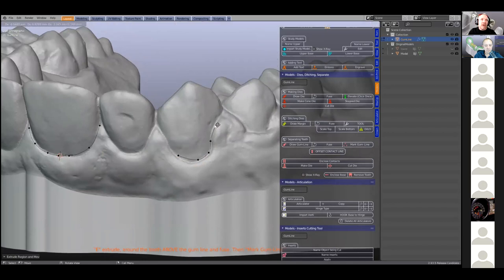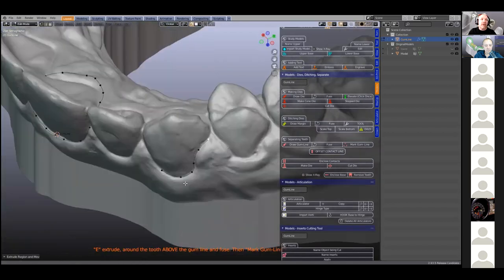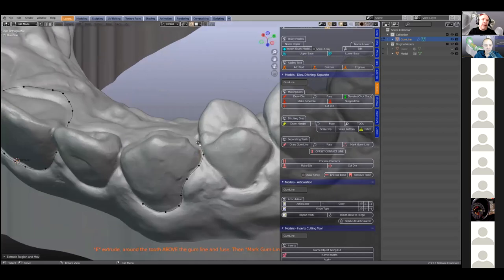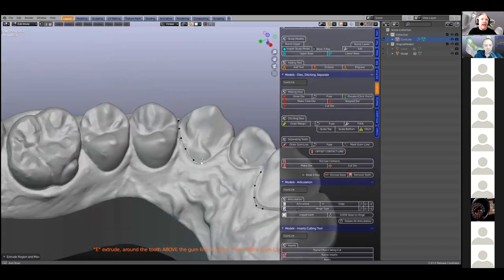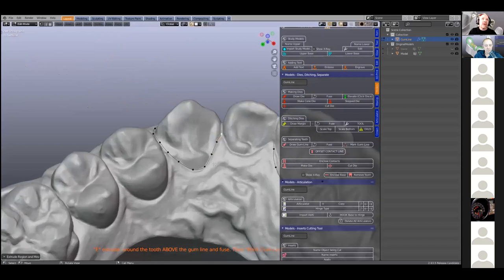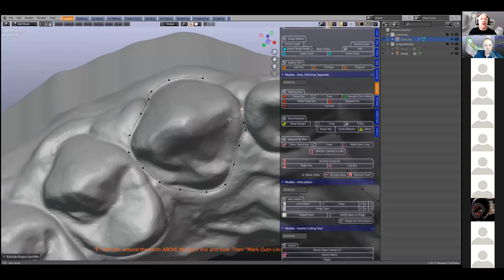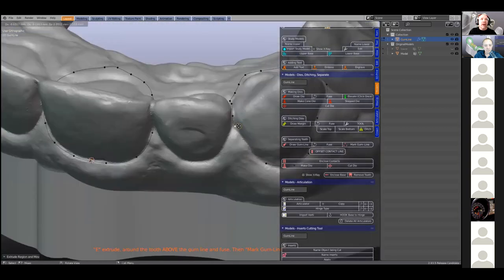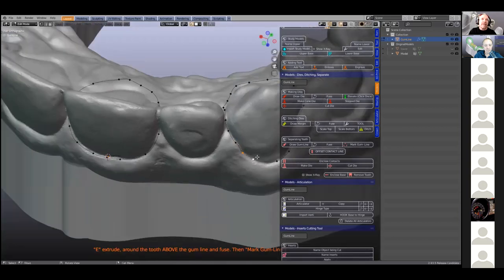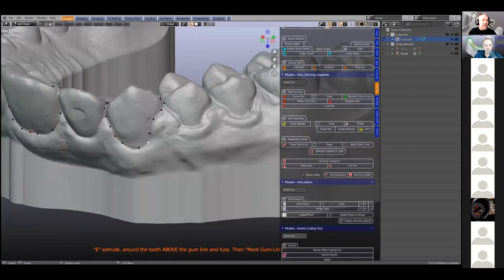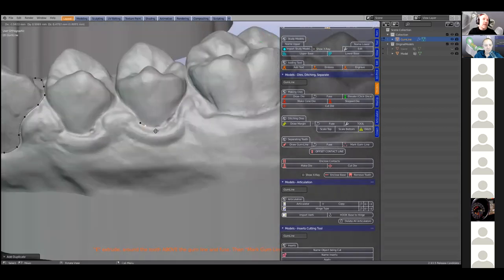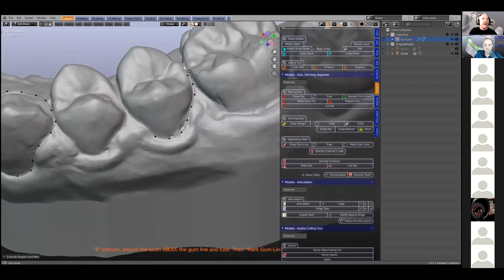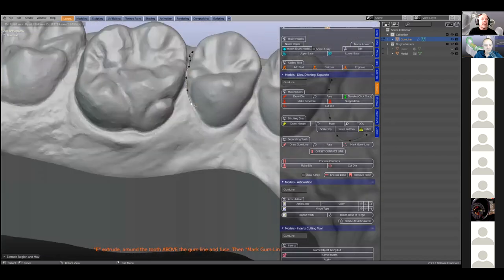Here we've got a bit of tissue which we should actually get rid of later on because the tooth hasn't erupted completely. Now when we're separating teeth, when we've got a contact which is tricky — this contact is very shallow — we don't actually have to penetrate through this contact. I'm going to go all the way around it like this and fuse it on the side. I'm going to take another one of these vertices, shift D, and notice that I'm skipping one tooth. I'm not going to do adjacent teeth because I want to do the contacts just once. This does seem to help, especially if you've got tricky contacts.